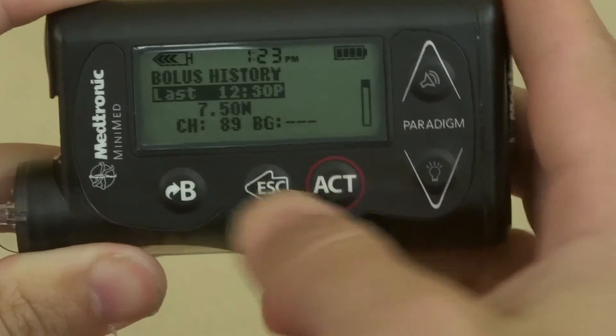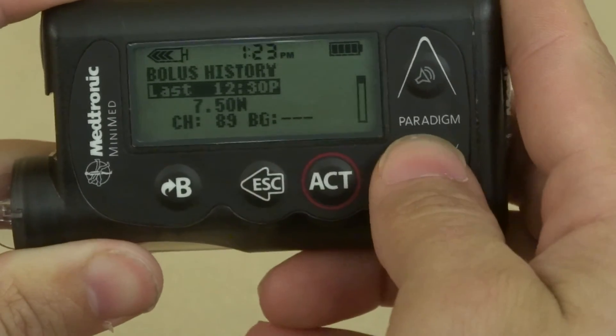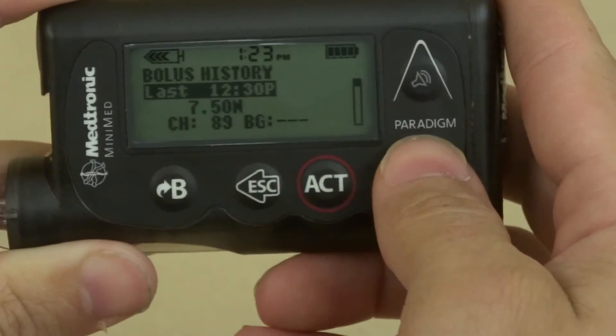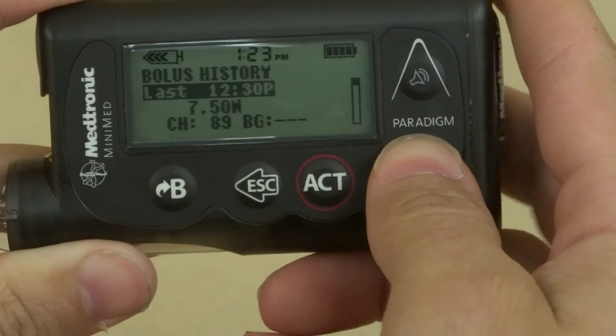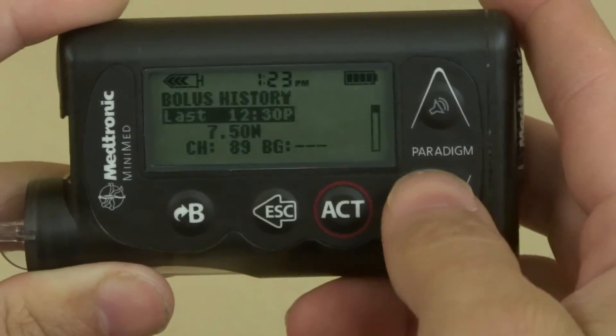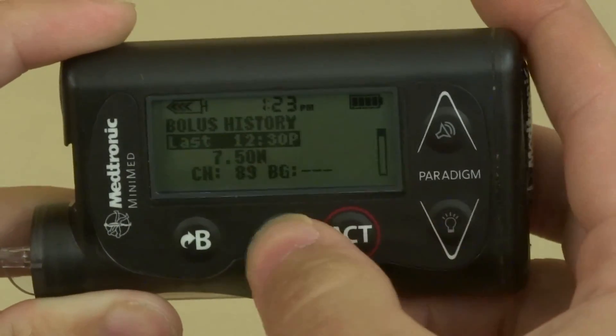My last one, I had 89 carbs and got 7.5 units for lunch, so I did not miss a bolus.